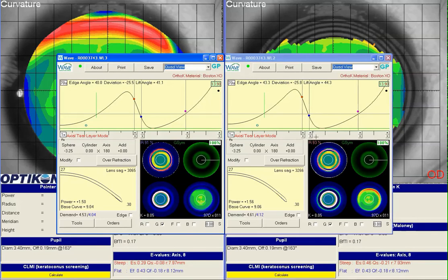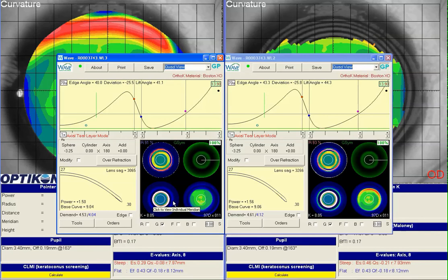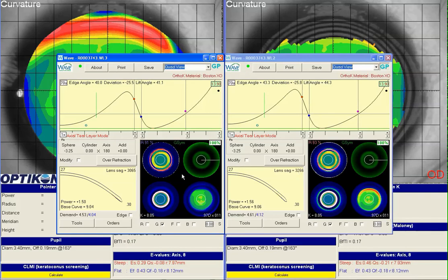On the right side is the lens that the patient has right now, and on the left side is a lens designed off of the edited topography. You can see that the corneal topography view in the Waves window is a little bit different — we don't have that second ring anymore, and after the reverse curve the lens just flattens out. Looking at the sagittal depth, the new lens is about 3065 versus 3266, so about 200 microns more shallow, and this lens will settle much closer to the cornea.